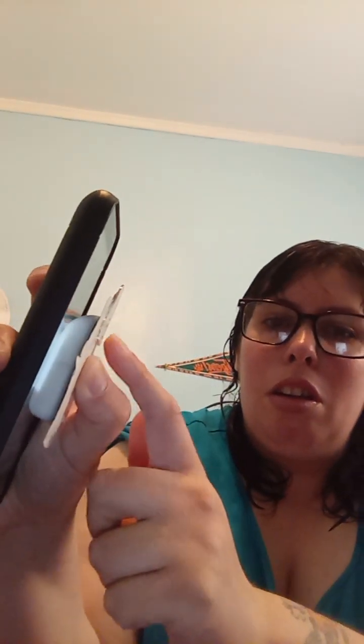As you can see, the needle is going to go into this hole where the arrow is. And you will hear the two beeps — there you go. When I got home from work my pod was on the back of my arm but it actually fell off and the needle was bent.